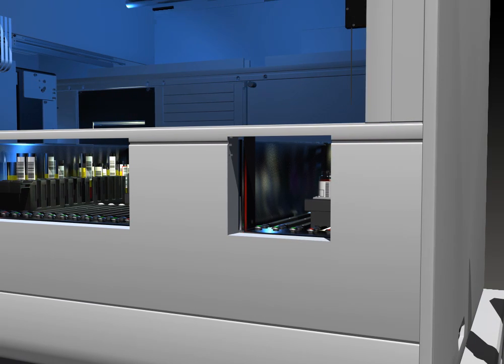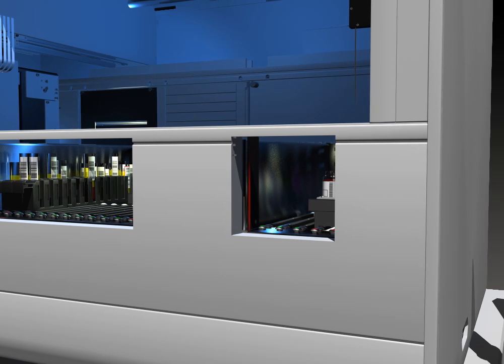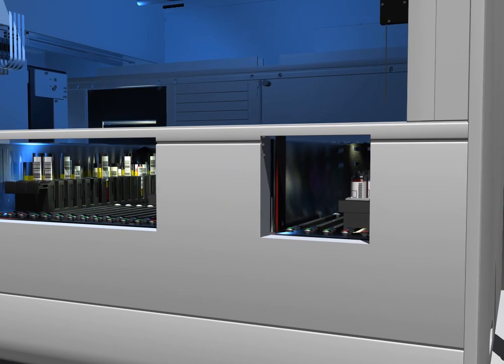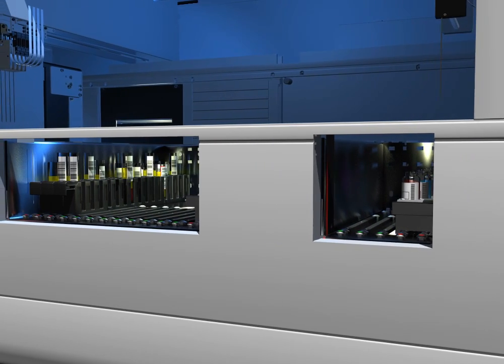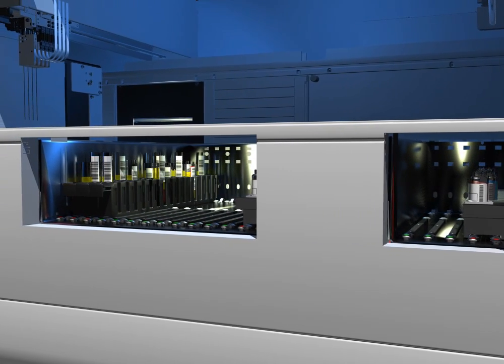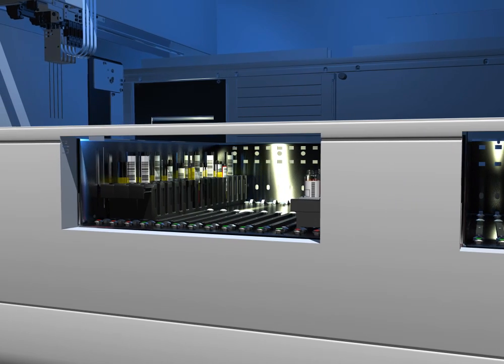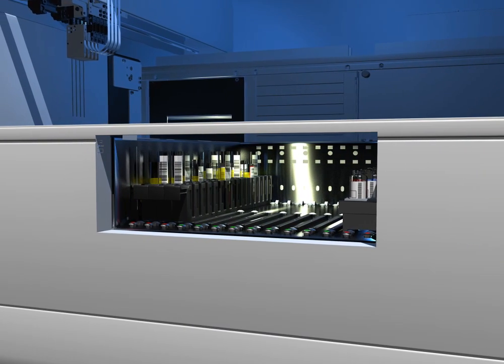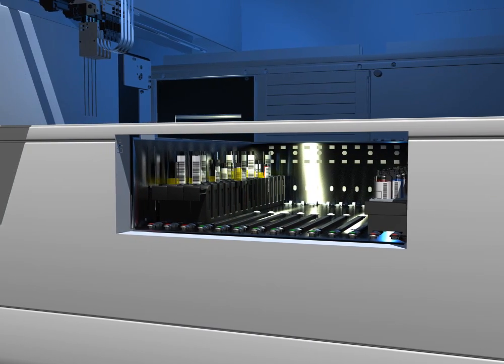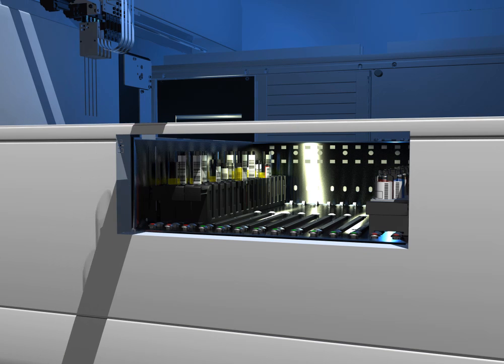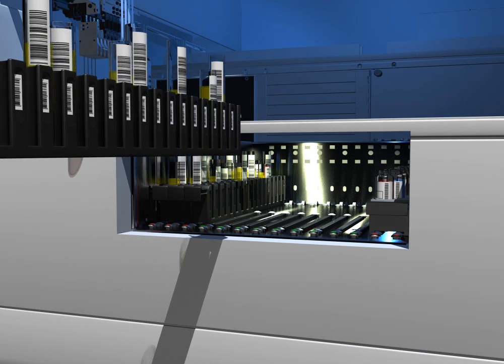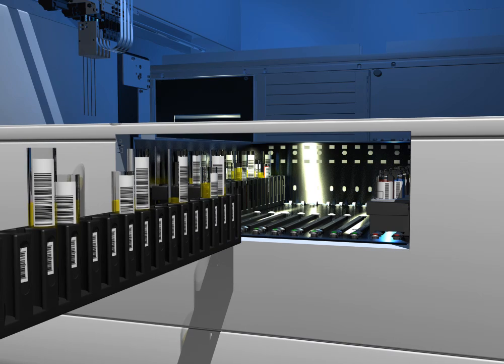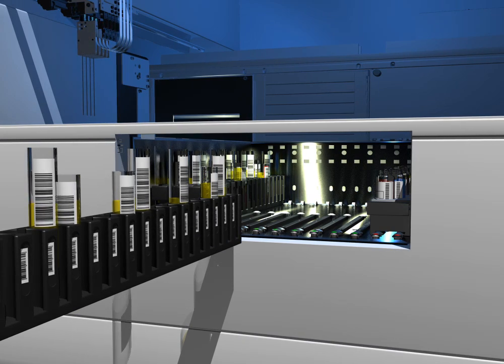Immucor reagents all feature barcodes and can be placed in any position on the reagent rack. Each reagent barcode contains the reagent type, lot number, expiration date, and a unique serial number for every vial so that NEO can maintain an inventory of onboard reagent volumes. This gives us true positive ID and immediately tells NEO what samples or reagents are loaded in what position.